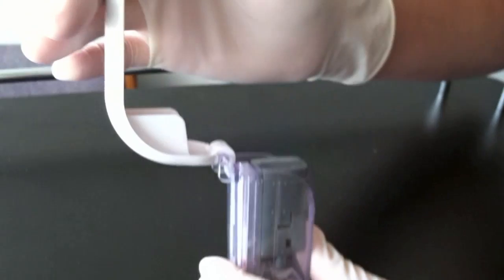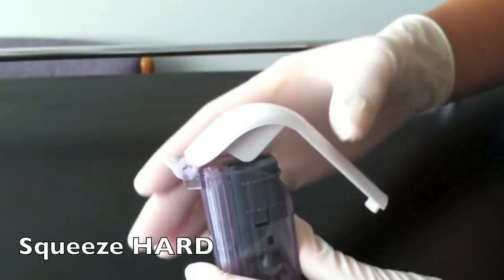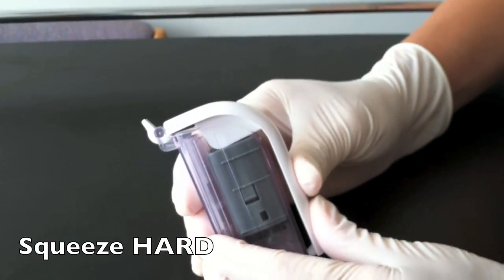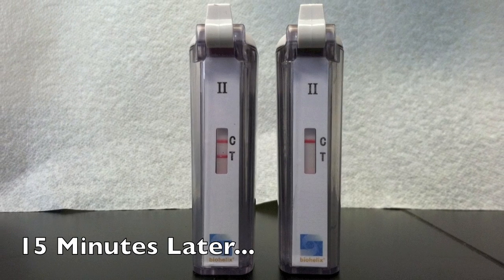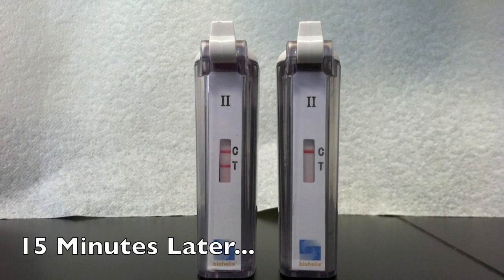Keep the device upright and squeeze the handle of the outer casing to close. The handle will lock into place when closed completely. Read the result after 15 minutes.